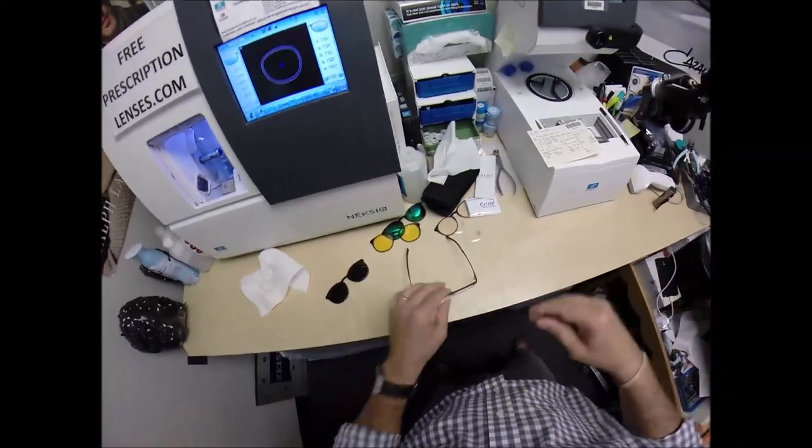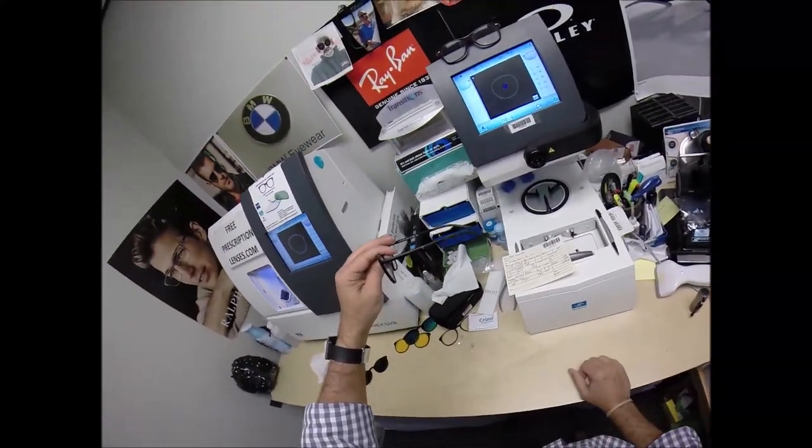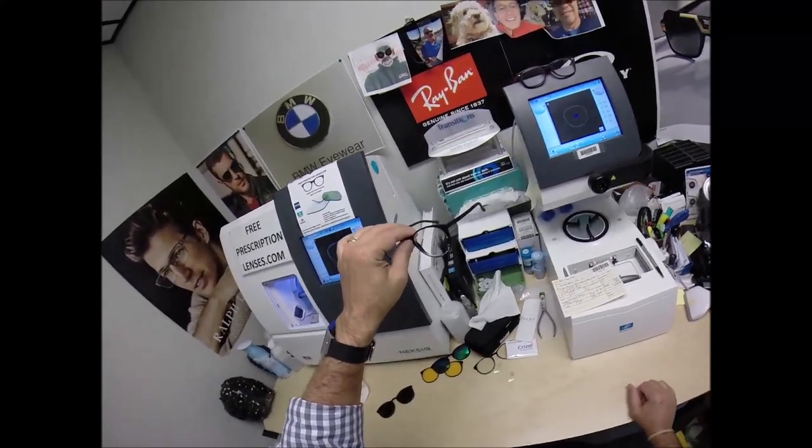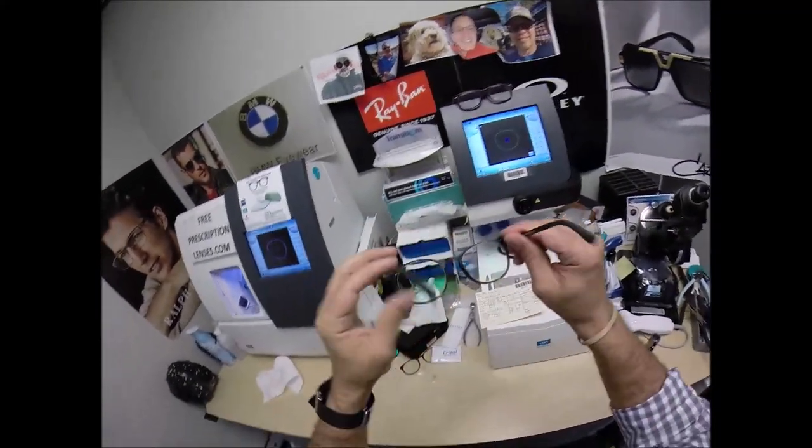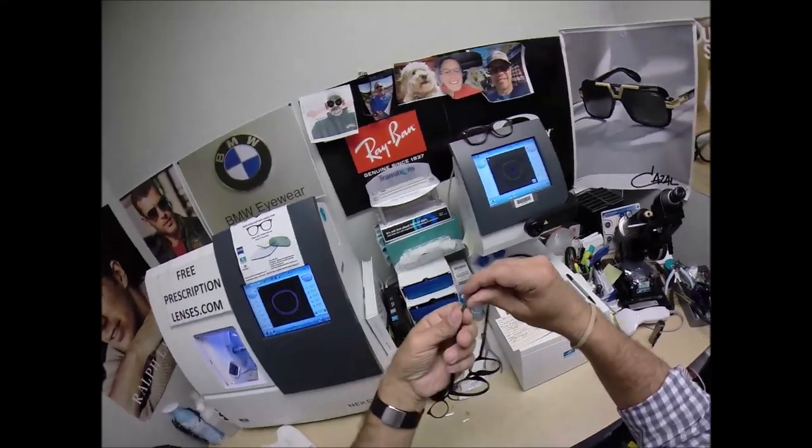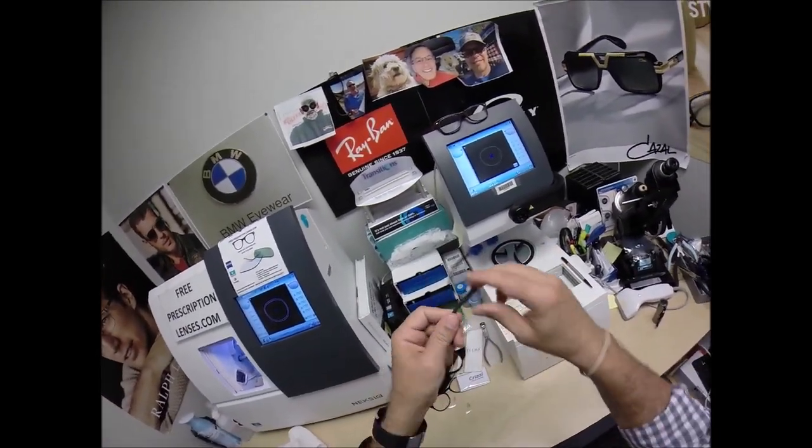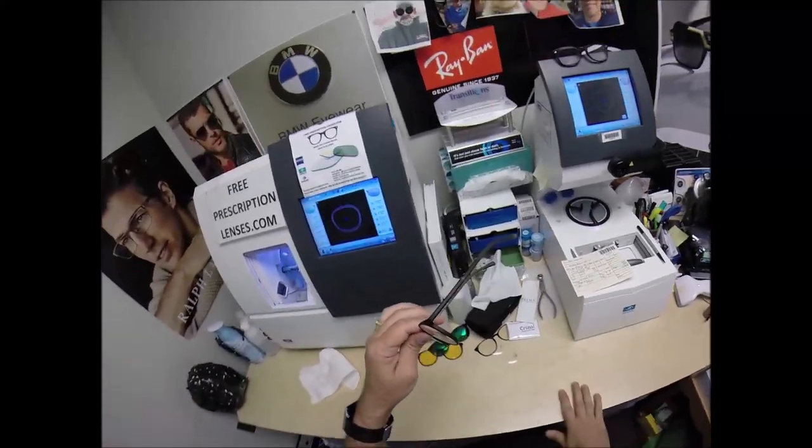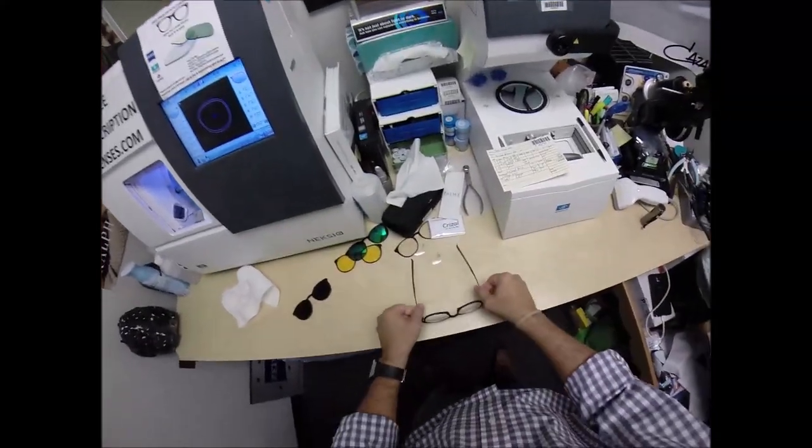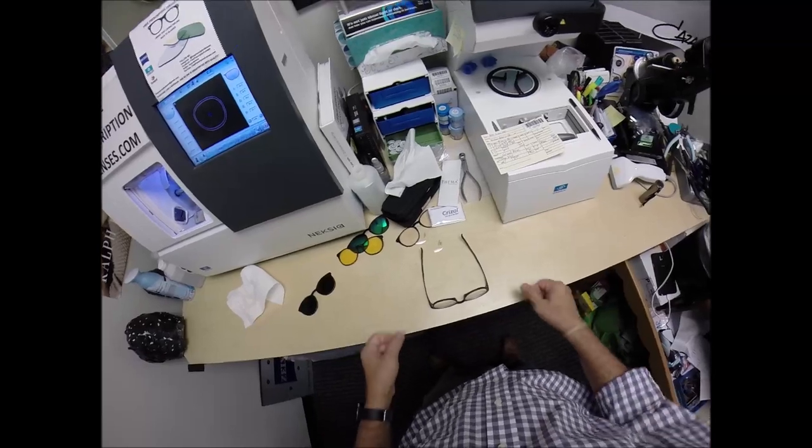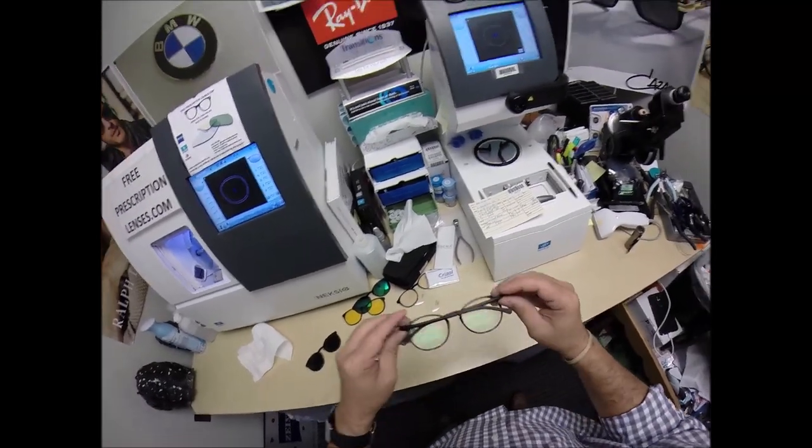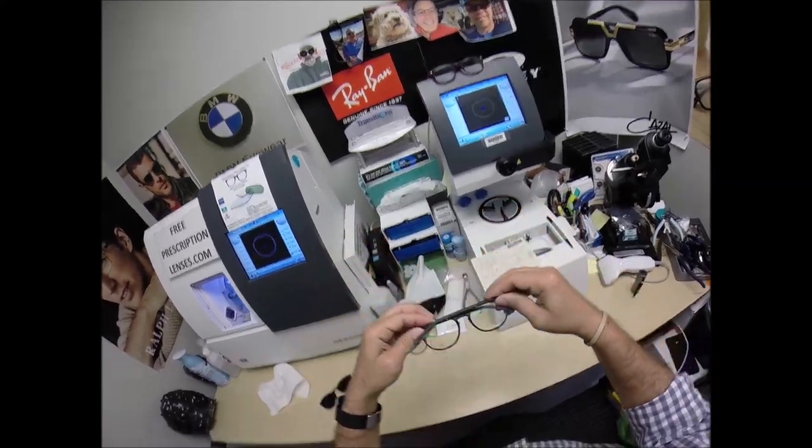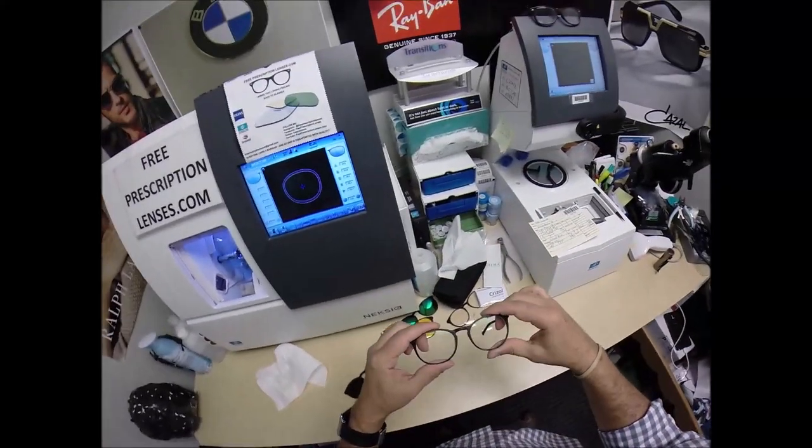But I'm going to get them in standard alignment first, also known as a three-point stance. The three points are one, two, and the bottom of the frame being three. I set them on the counter and press down. There is no wobble. Now, I'm part of that 80%. When I take my glasses off, they wobble on the counter, but they sit level on me. Now, because of that statistic, that 99% of all optical shops will do free adjustments, just go on in. It only takes about 30 seconds to a minute to adjust a pair of glasses perfectly. Now, if these slide down your nose, you at home can tighten these behind. There's a metal core in here, and you can move it back and forth. A novice can do it. That's what I love about these Ultums.